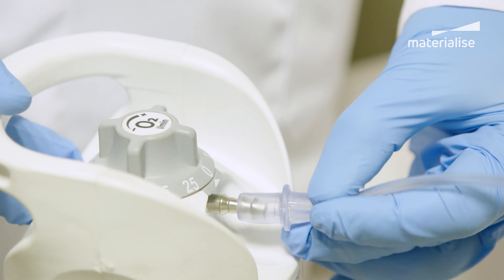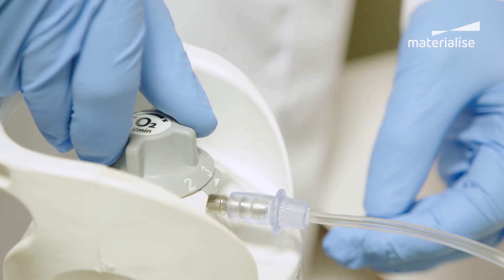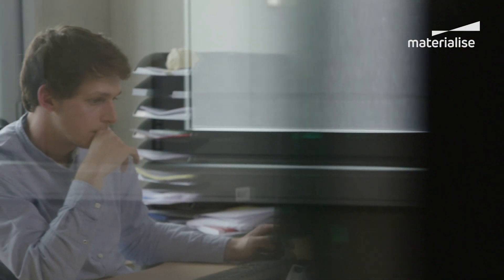To install it on the patient, you just have to connect it to the oxygen supply — it's a simple system. In a matter of days, we were able to go from ideation to an actual proof of concept that we tested together with a pulmonologist. And a few days later, we were ready for verification testing on healthy human beings.